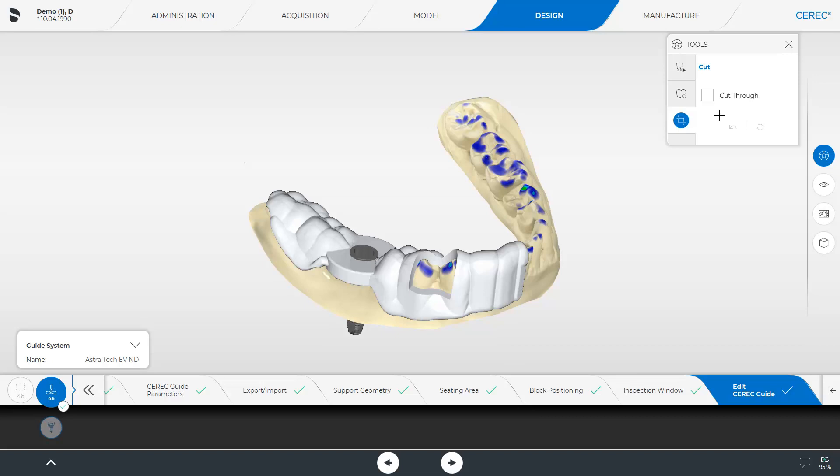We start with a double click, then set single clicks up to the point where you want to finally cut off the area, and finish with a double click. Just make sure to not include areas that shouldn't be cut off. If that happened, the cut can be discarded by clicking back or undo. Next, you will see the application of this tool in a short video sequence.